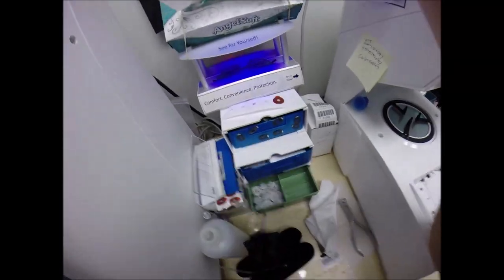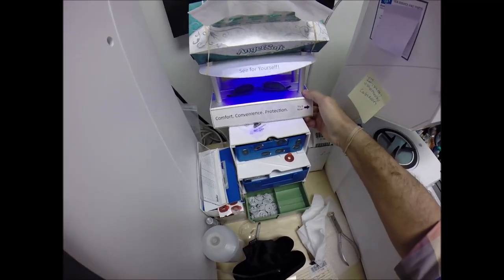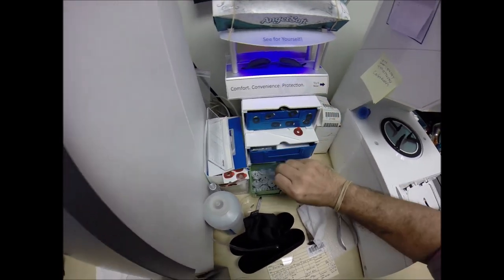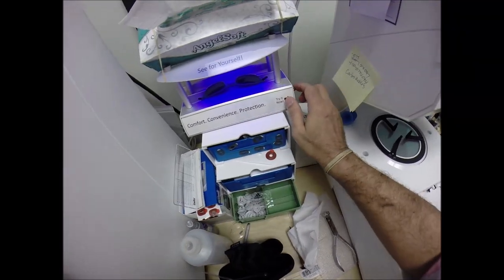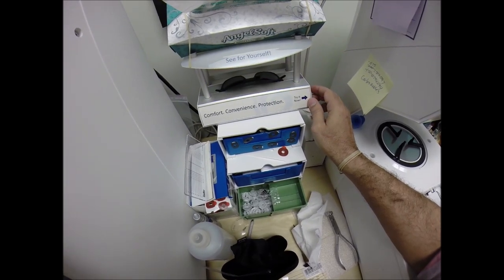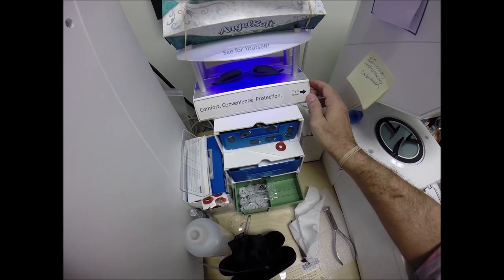Here in my little transitions box. Now as you can see, it takes about 30 to 45 seconds for all transition lenses to darken. It takes about 45 seconds to a minute to a minute 15 to return back to virtually clear. Now this is important, Jim. Pay attention. All transition lenses will get dark on day one and continue to darken every day for the first two weeks they're exposed until they reach their maximum darkness. After that, they will work for years and maximum performance.